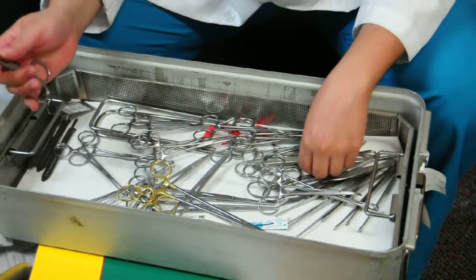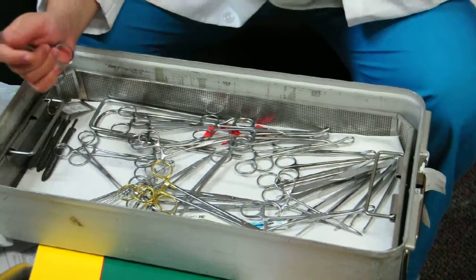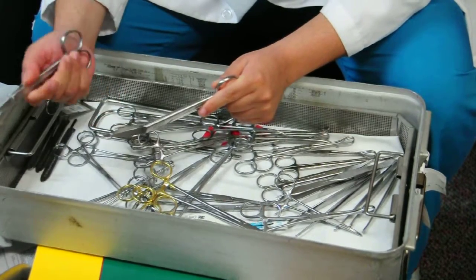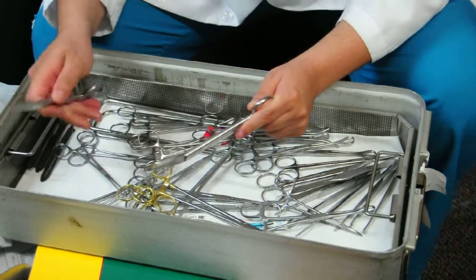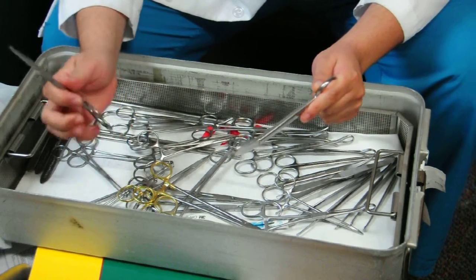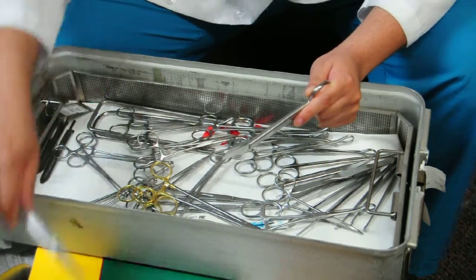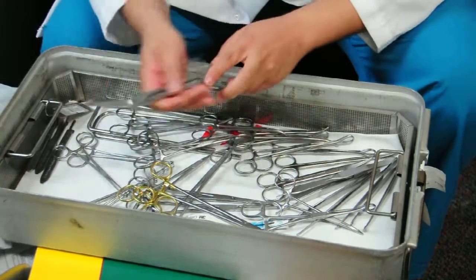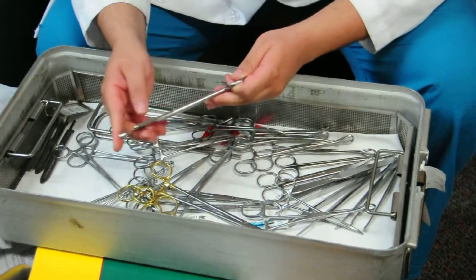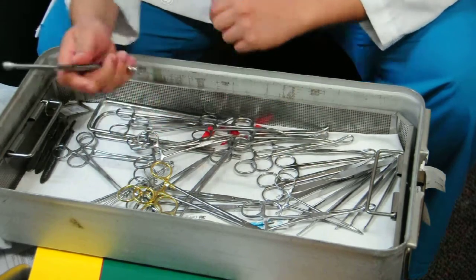These are straight mayo scissors and these are bandage scissors. Straight mayo scissors are used to cut suture. You can also use them during a hysterectomy when you're cutting the uterine. Bandage scissors are used to extend your hysterotomy incision during a C-section. The bottom part is protected so you don't cut anything underneath, like the fetus.